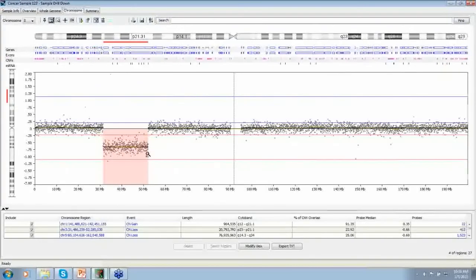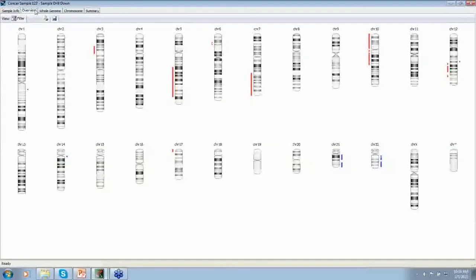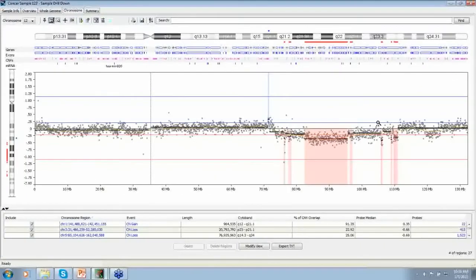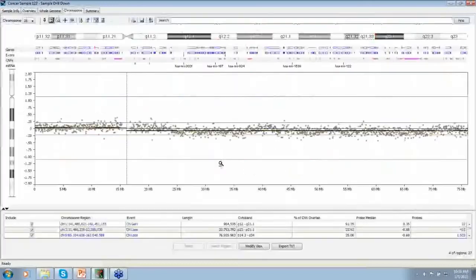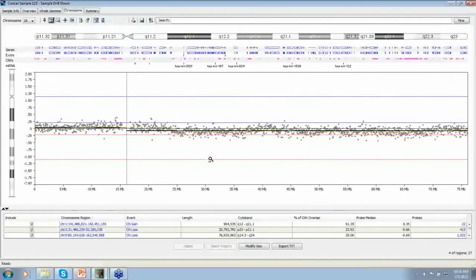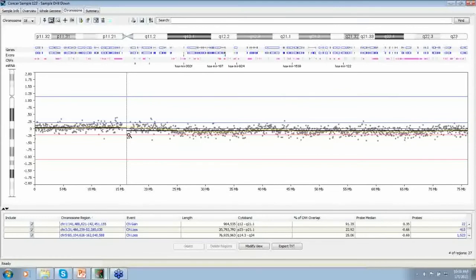We can clearly pick up these losses on these other chromosomes. They show up nicely like chromosome 3. This region is perfectly clear and lost. But as I showed before, the one here on chromosome 12, parts of it shows up and other parts don't. And if you go back to chromosome 18, it looks normal. It calls it as normal but you can certainly see that there is a very tiny deviation there.